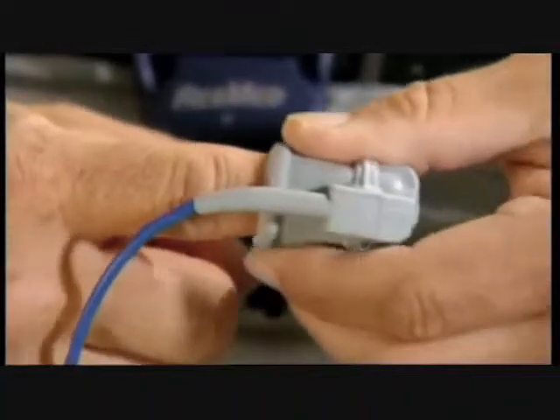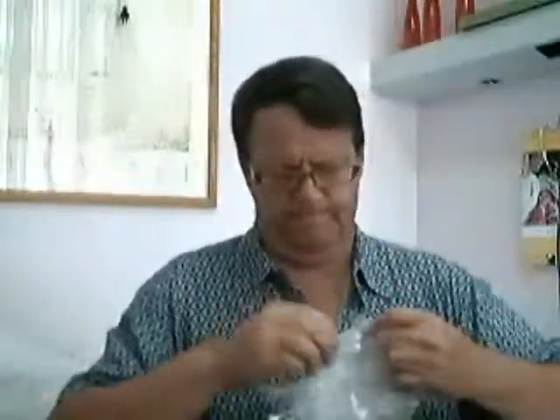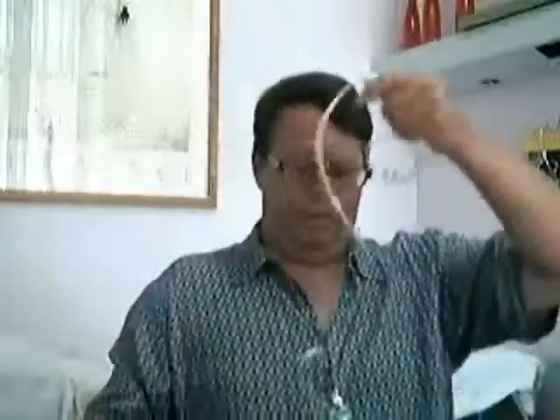You just stick your finger inside the sensor before you go to bed. Once you're ready to go to bed, you open the cannula and take it out. You're going to be placing it over your ears, inside your nose, and adjusting it.